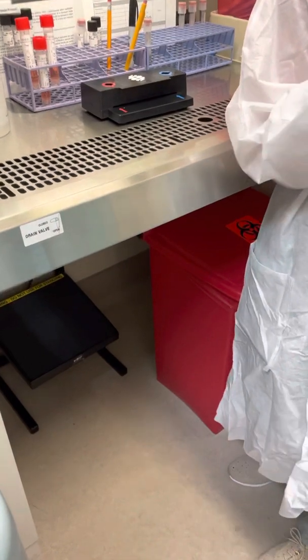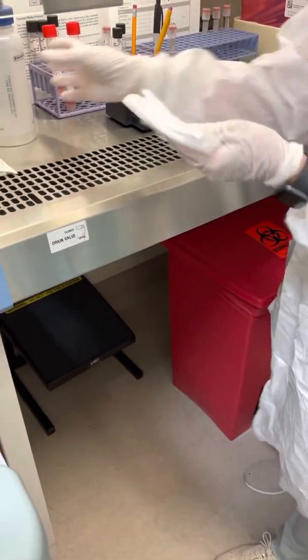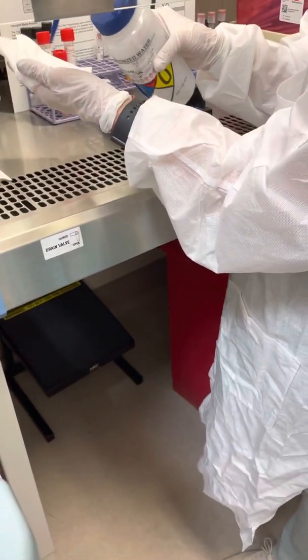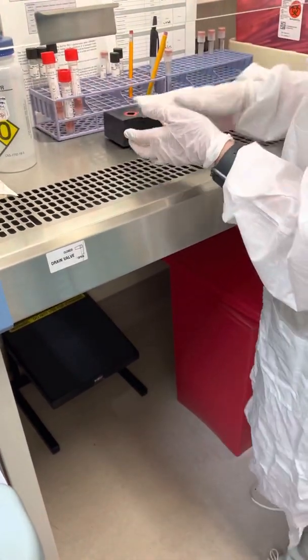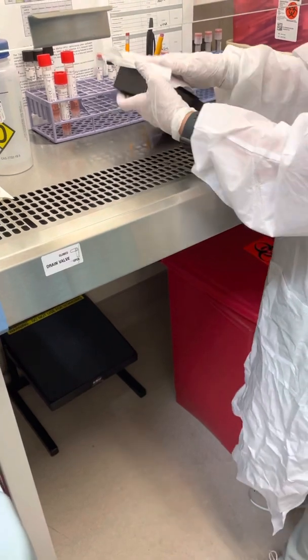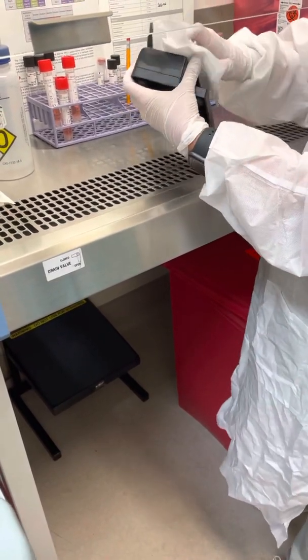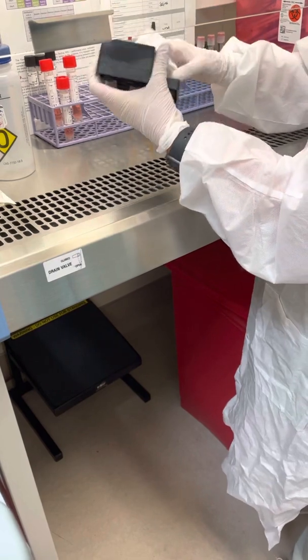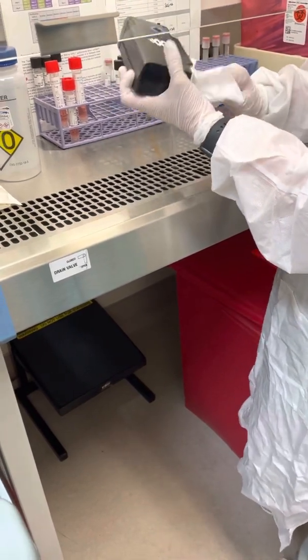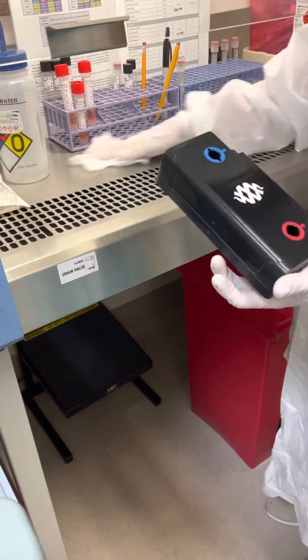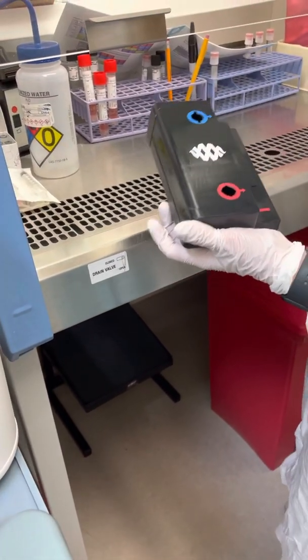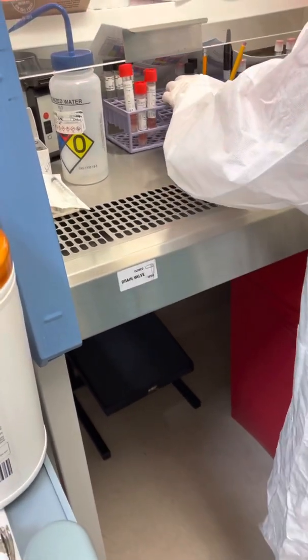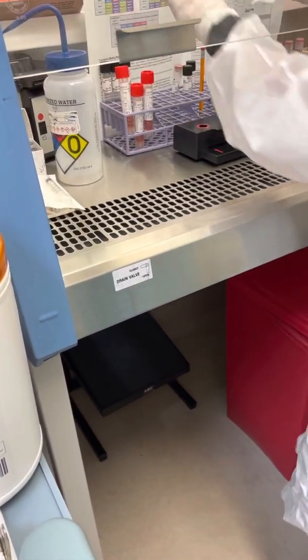Then you're going to take your alcohol and follow up with the alcohol. The reason for that is to remove any residual bleach that is on here. Then you want to change your gloves, always change your gloves after cleaning.